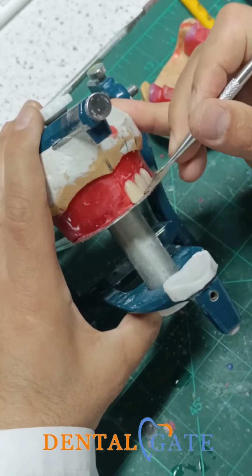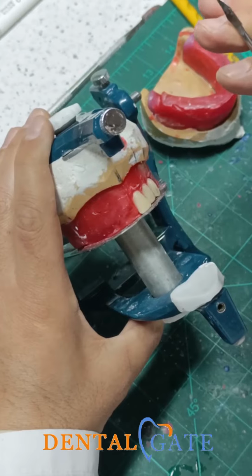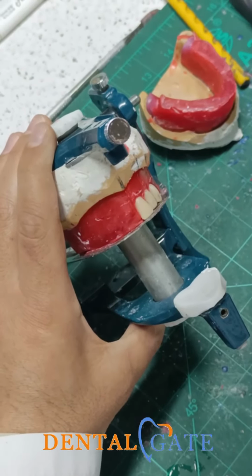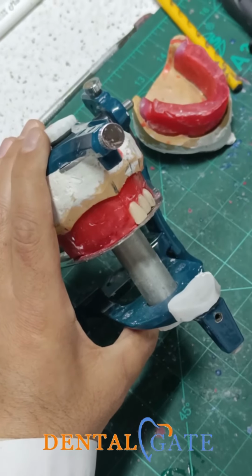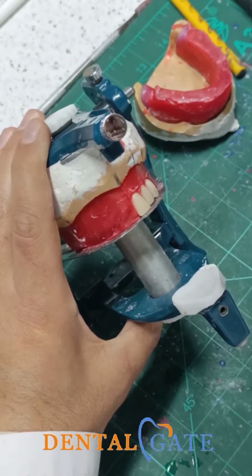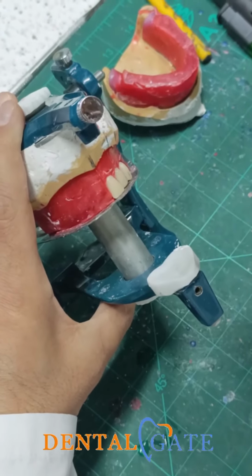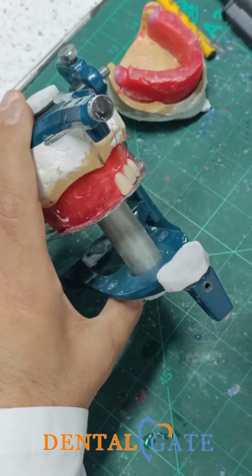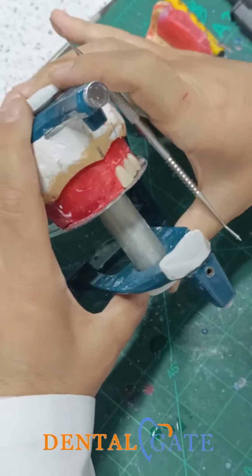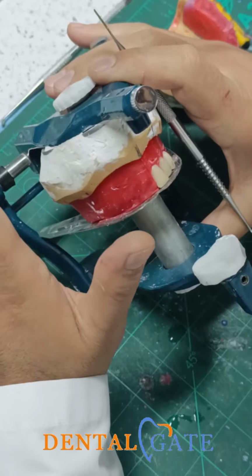Regarding the lateral incisor, you have two choices. If you want to make an inclination to the distal, that's right. But my recommendation, don't make it now because you are just practicing. After that, you can start to add these features. According to the anatomy, you can make a tilting in the lateral, as well as in the posterior. I will mention that in a further lab. So regarding the lateral, my recommendation: don't make any inclination. Just put it in the vertical axis.